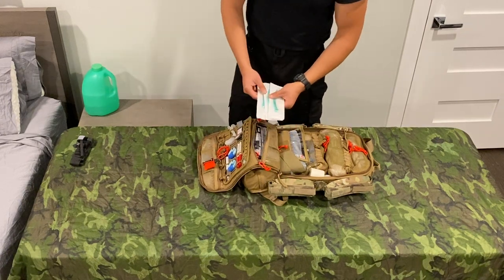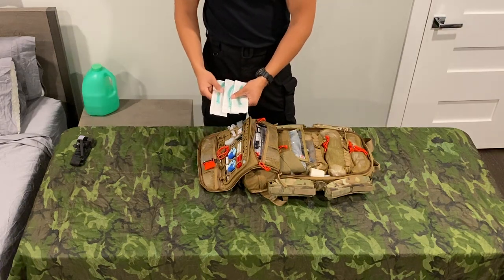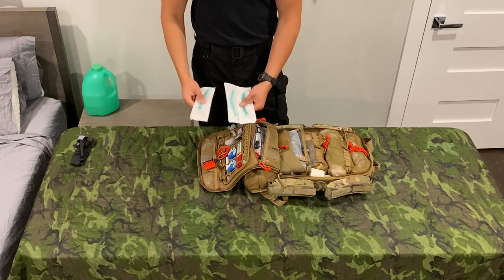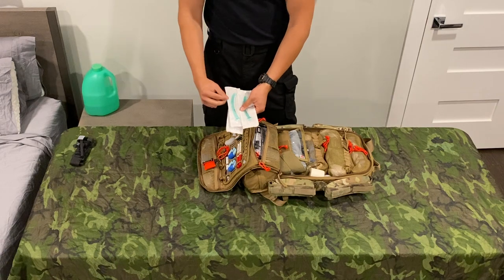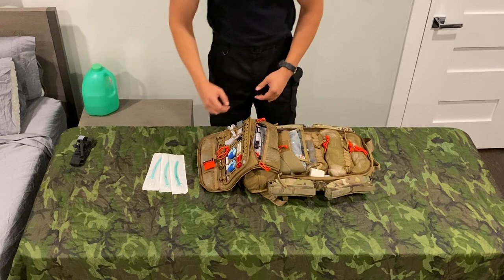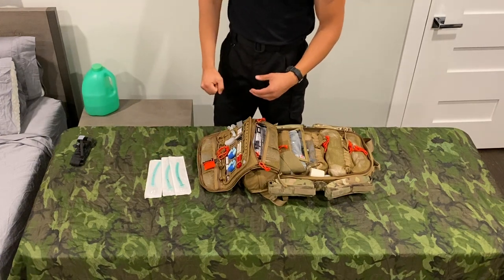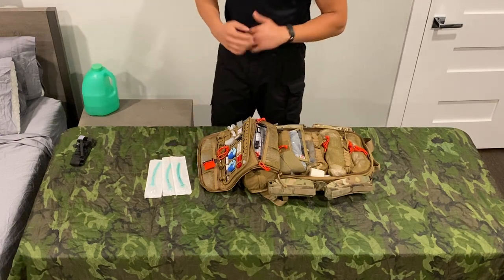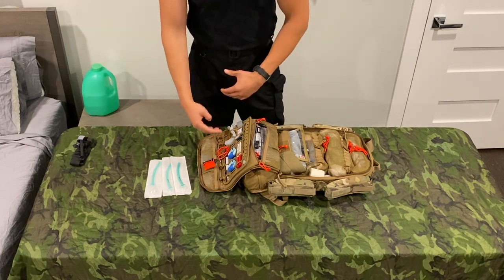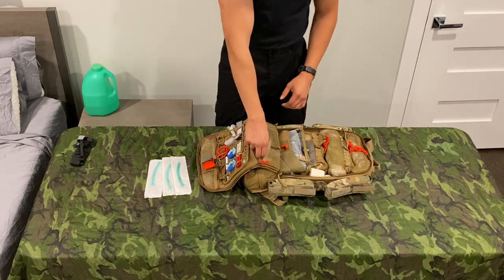The airways I do actually really like are nasopharyngeal airways. These are a different brand — not the typical Rusch ones. They're MedStorm. They're a little bit more robust and don't deform as easily as the Rusch ones, which start to crimp off and defeat the purpose. I really like these — 26, 28, 30 French — the sizes I use the most at work, also the sizes that fit the guys I roll with. I keep them in their packaging flat. There's nothing wrong with keeping them out of packaging because they're not technically sterile, just aseptic.